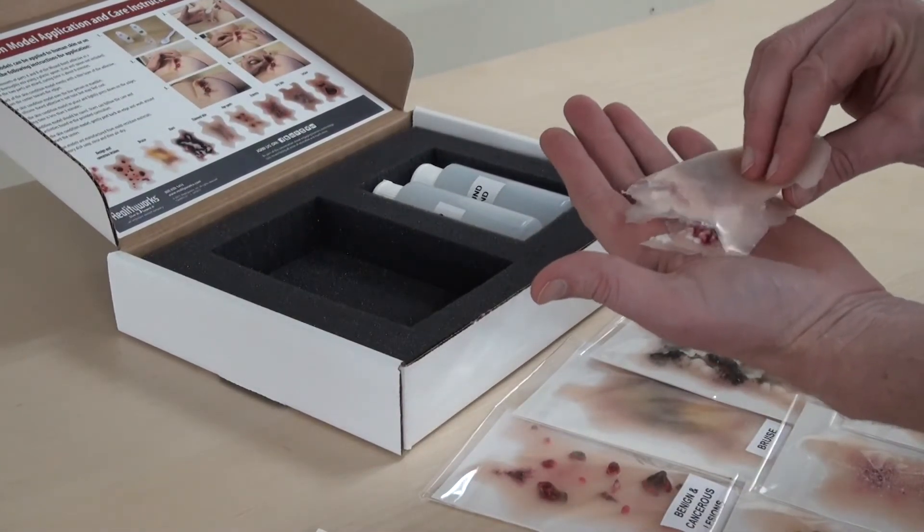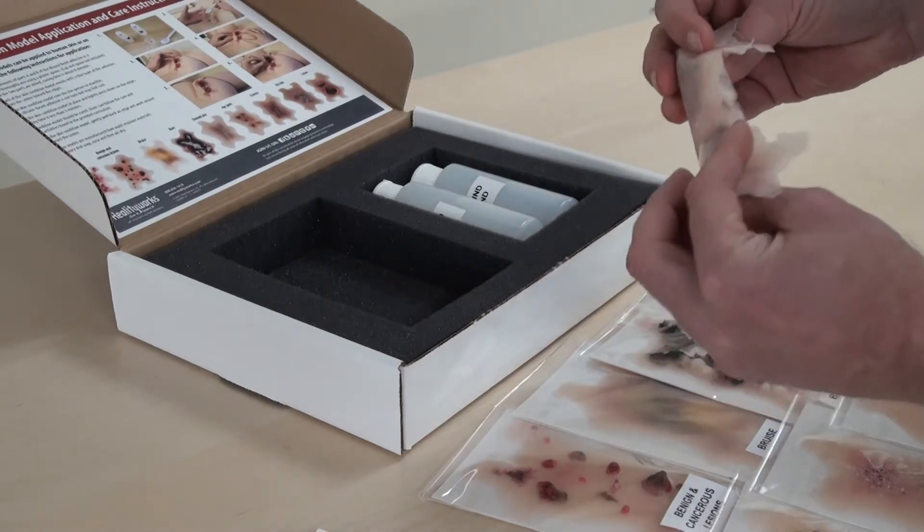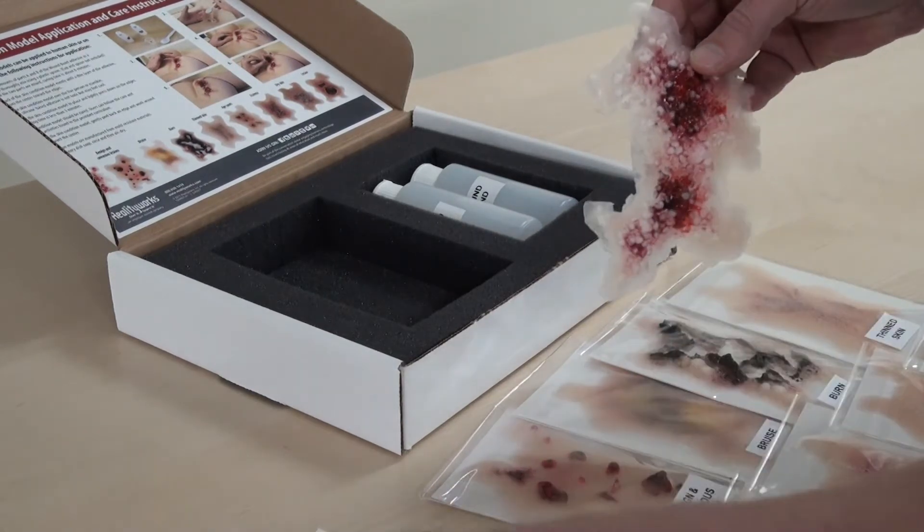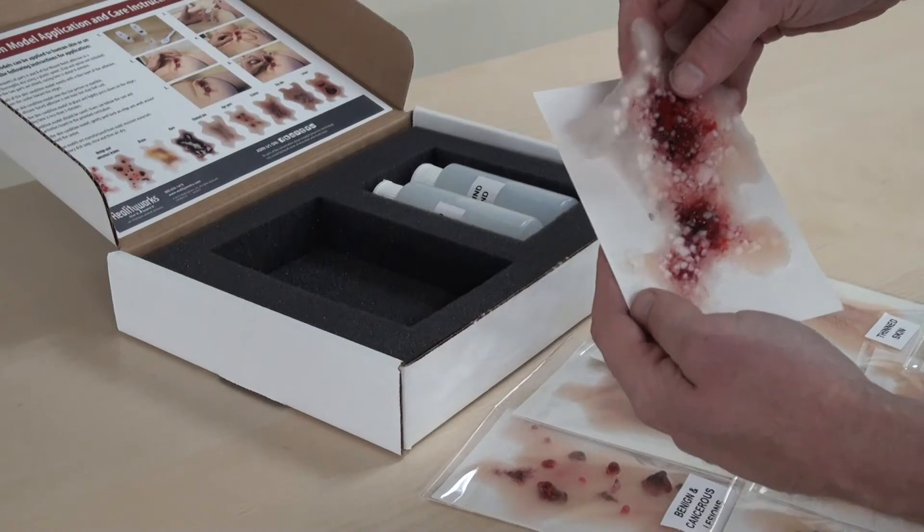Give your students real-world experience assessing common geriatric skin conditions with the Geriatric Skin Conditions Kit by RealityWorks.